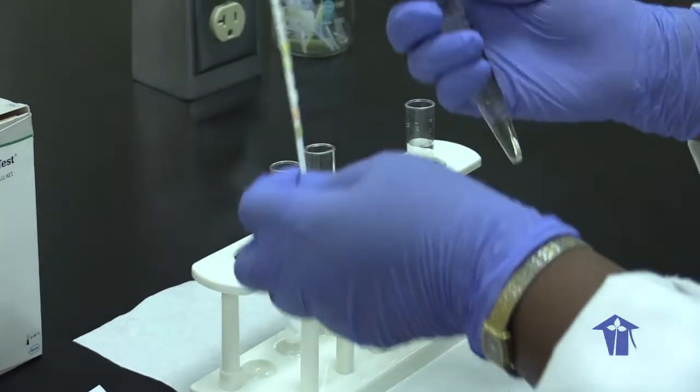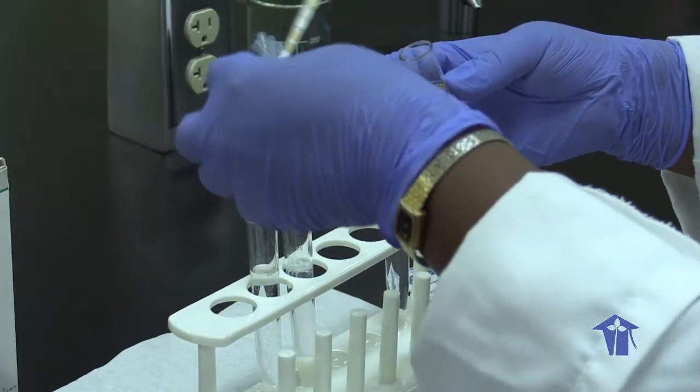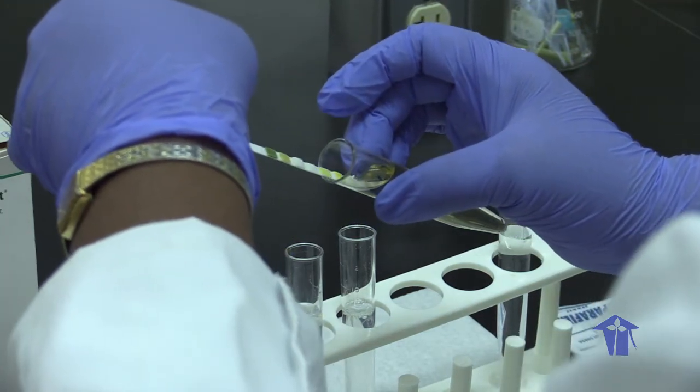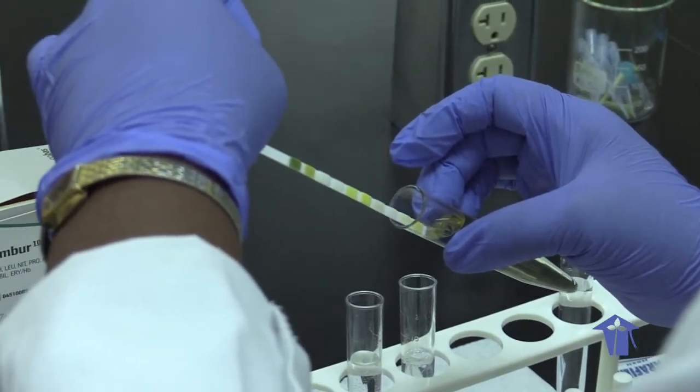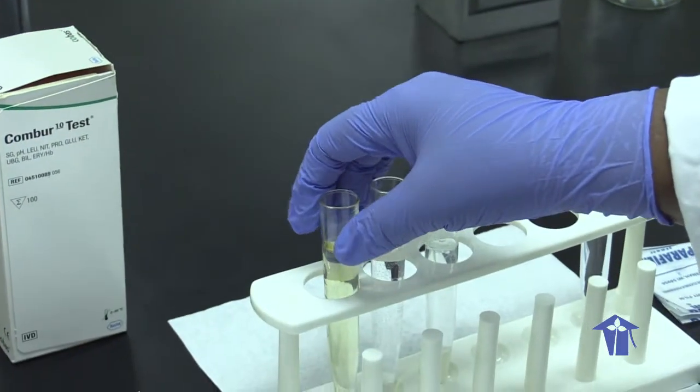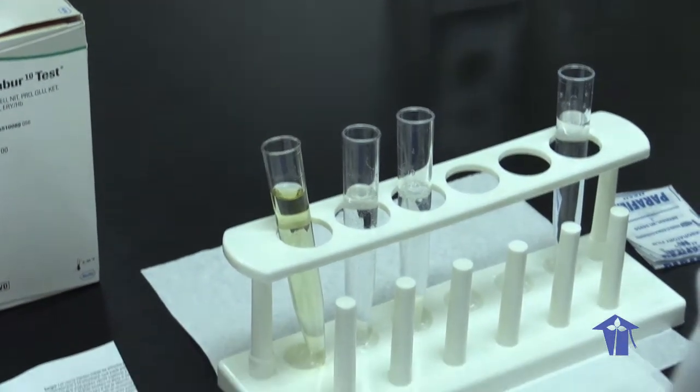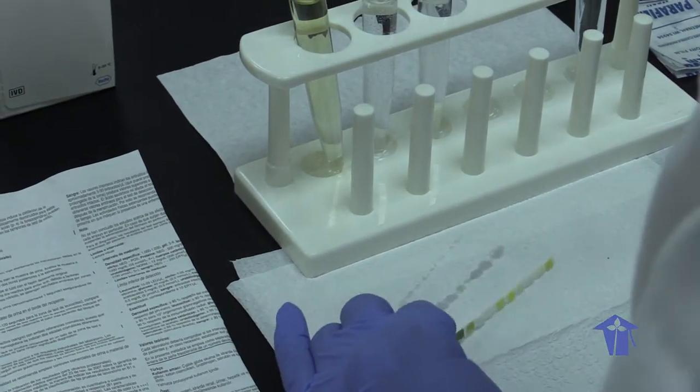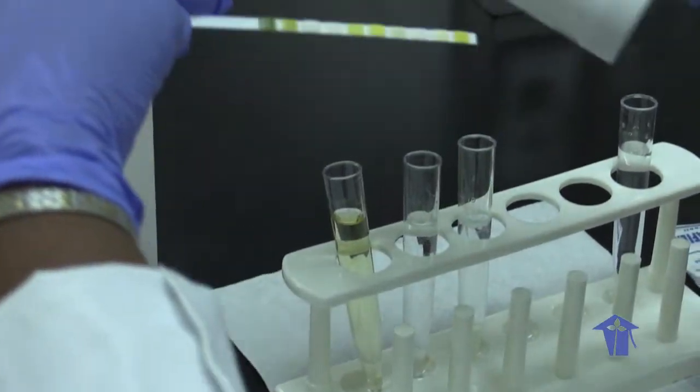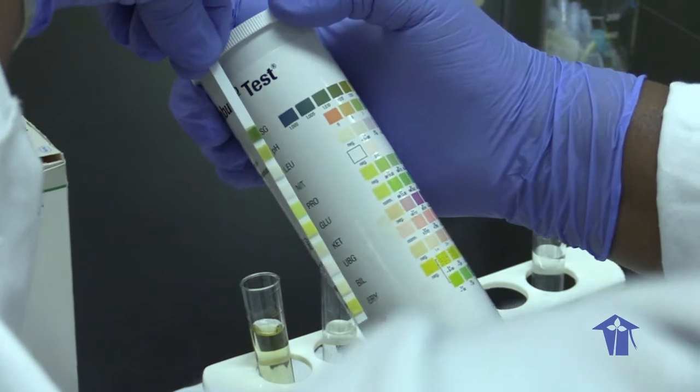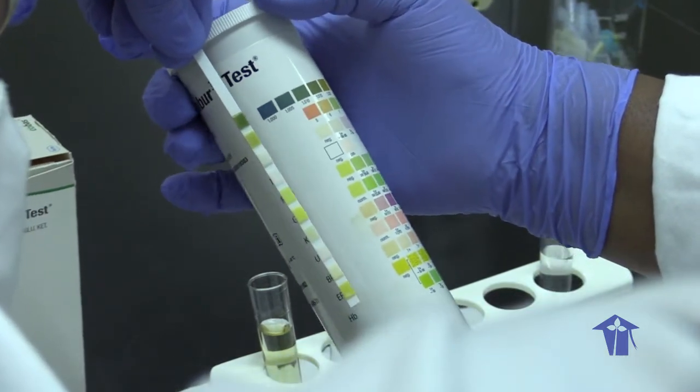For example, the dipstick is immersed into your urine ensuring that all the pads are covered. It is then blotted onto some tissue paper. And it is held alongside and it is read within the time that the insert gives for the reactions.